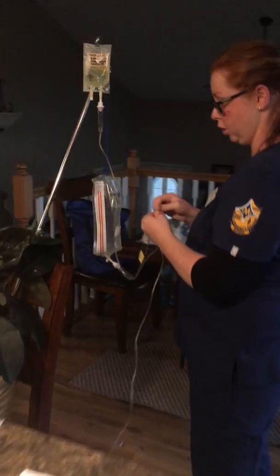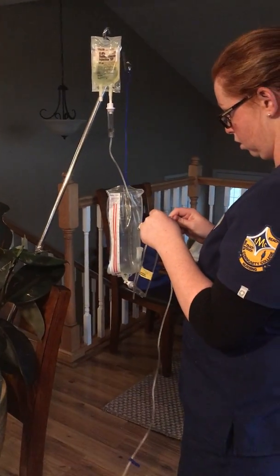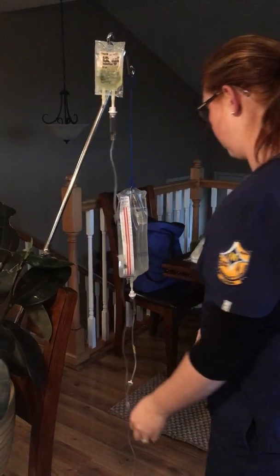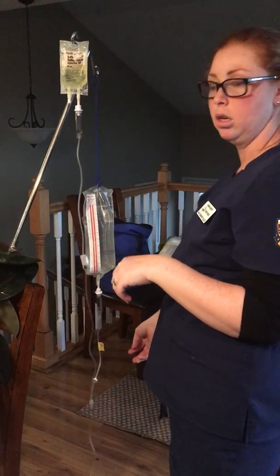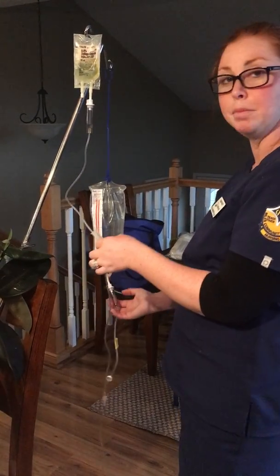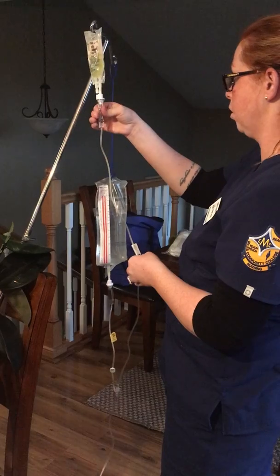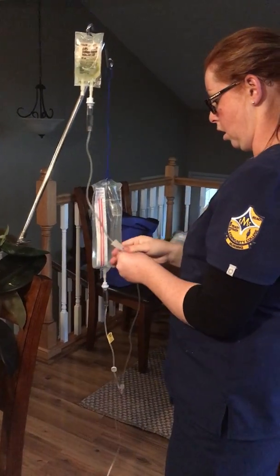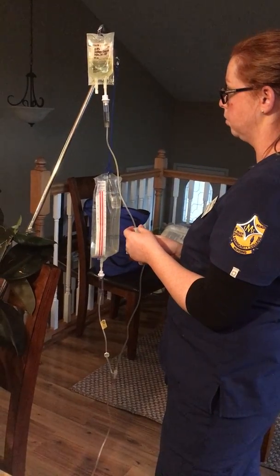It probably also wouldn't hurt to go ahead and label this tubing as well — I don't have another label for it right now. So I went ahead and got my drip rate all ready to go. With this one it's going to be really slow — three drops for 15 seconds. I've set it on this main line of tubing. However, you can prime this, get it about half full, and then open this up, and it should be right at about three drops for 15 seconds.